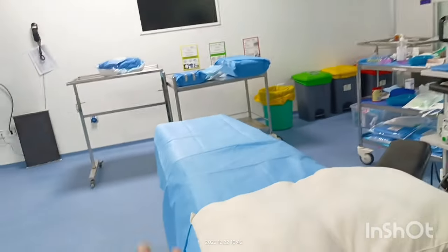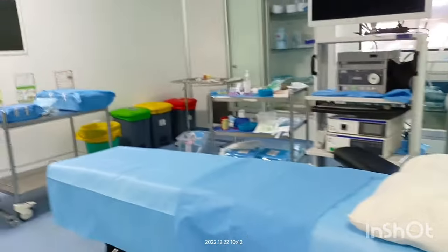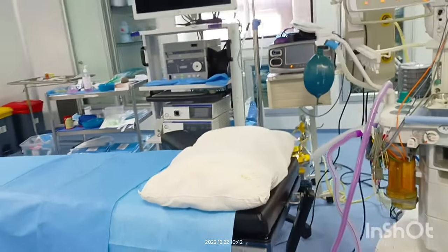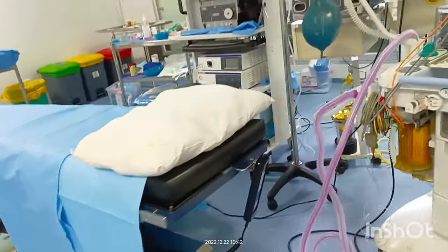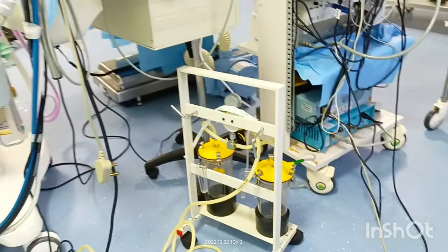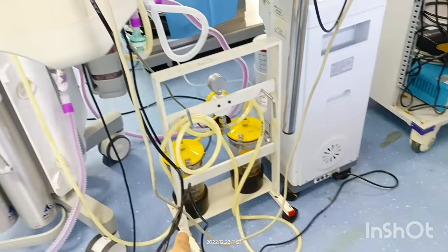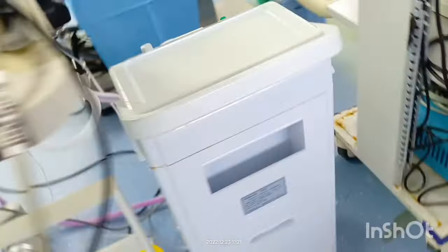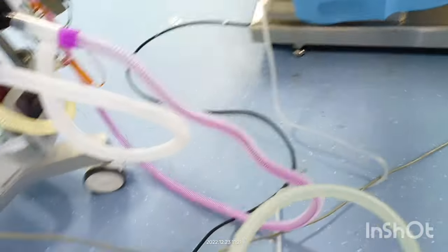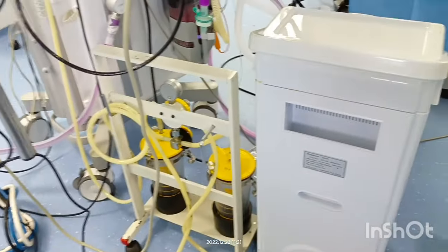The operation bed should be clean and a sterile cloth should be placed on it, positioned properly by the anesthetist. Another important task is maintaining the suction machine — during or after intubation, this suction machine is used to remove secretions from the patient's mouth, so we need to keep it ready as well.